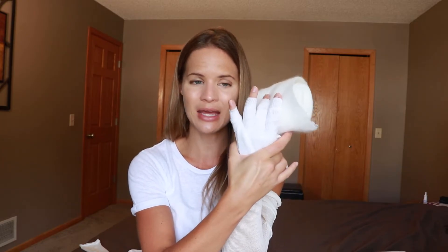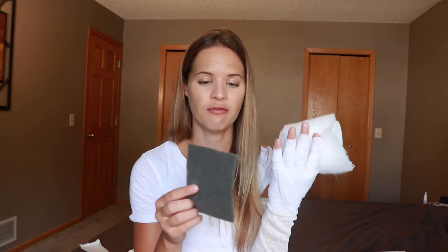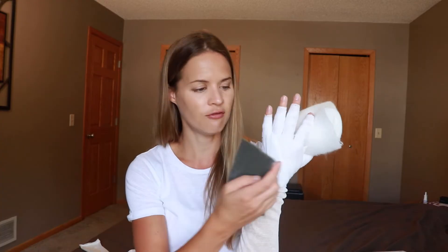When completed, you should be able to make a fist. If you see your knuckles stick out or a lot of skin, you may have missed some spots — try to get a little lower for more coverage. I'm going to use Artiflex but I'll also put a piece of gray foam on the back of the hand. The back of the hand needs some support — otherwise it gets too tight, which can be uncomfortable for your fingers or make them feel like they're losing blood flow. I also make the gray foam a little longer — from the knuckles to a little past the wrist — because without extra padding there, bandages can cause more of a tourniquet effect and carpal tunnel-like symptoms when your hand goes down.